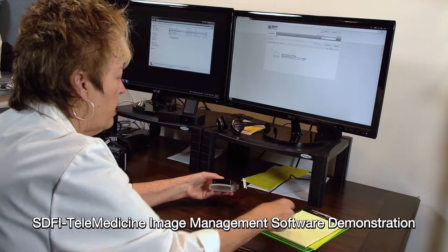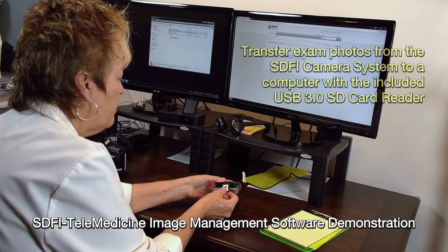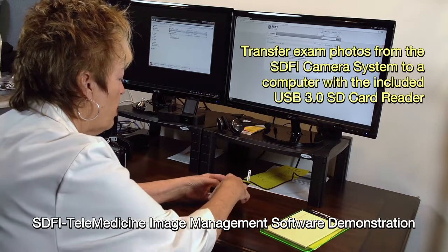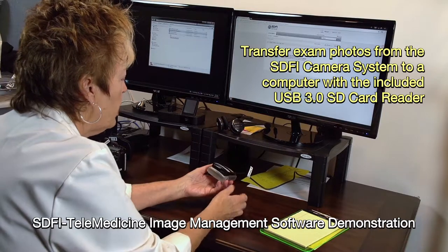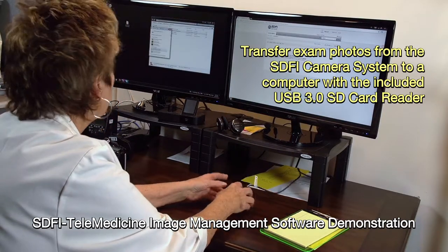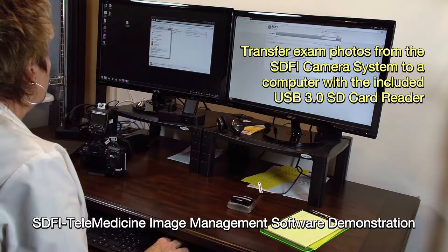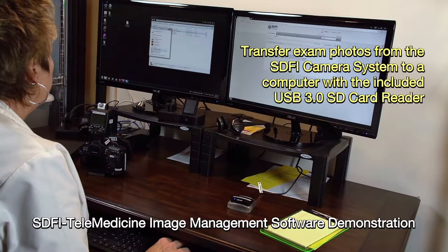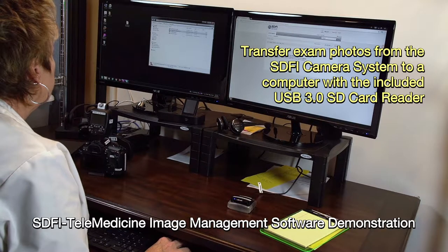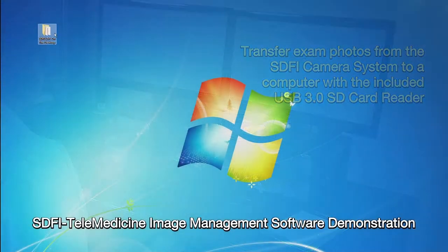Once the physical examination and photo documentation have been completed, it is important to transfer the photos to a computer where they can be reviewed, assessed, and properly secured. Always keep the sensitive nature of the exam photos in mind prior to opening or reviewing any of the images, to ensure that patient privacy is maintained.